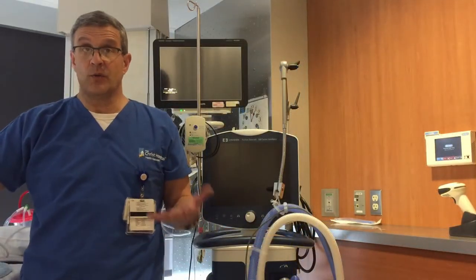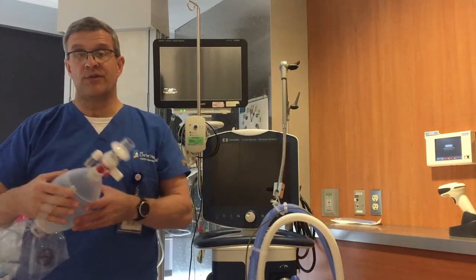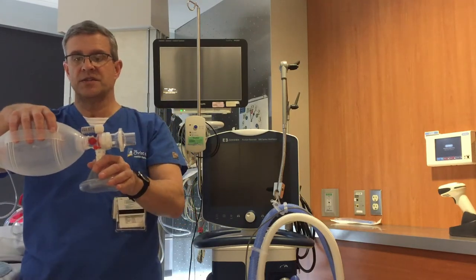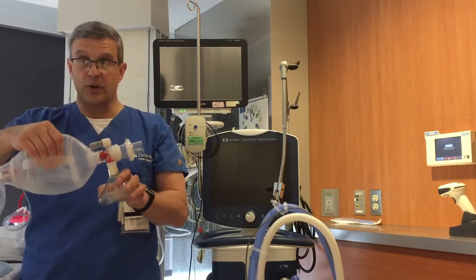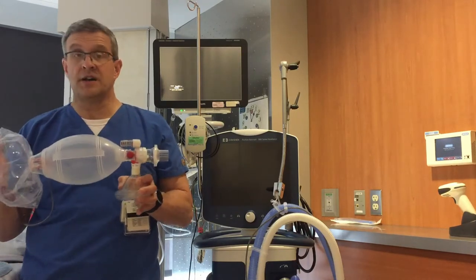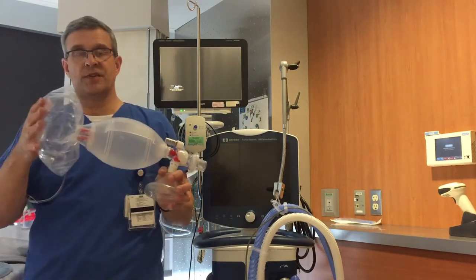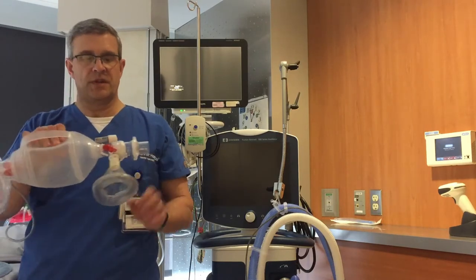If someone is not breathing effectively, or not breathing at all, you can grab a manual resuscitation bag and provide ventilation and oxygenation for them. Put a mask on the bag, place it on the patient's face, get a good seal, position the head properly, and you can deliver a certain volume at a certain number of times per minute, at a certain speed and oxygen level. I have this hooked to oxygen, so it's filling up the reservoir bag and we'd be delivering about 100% oxygen to the patient.